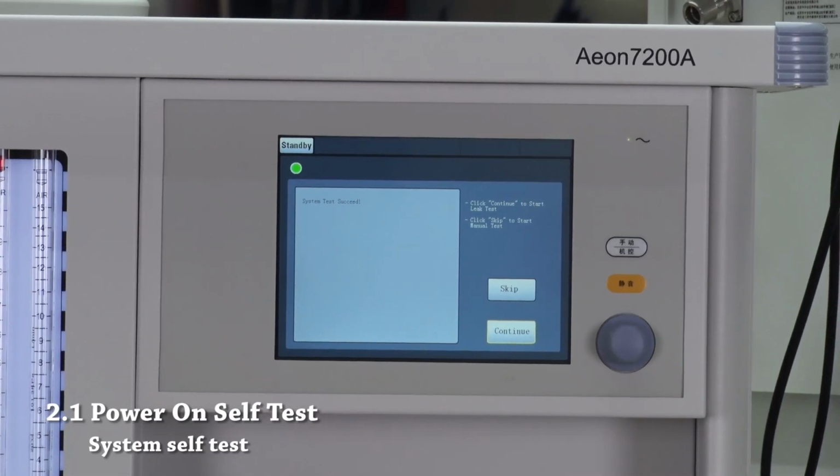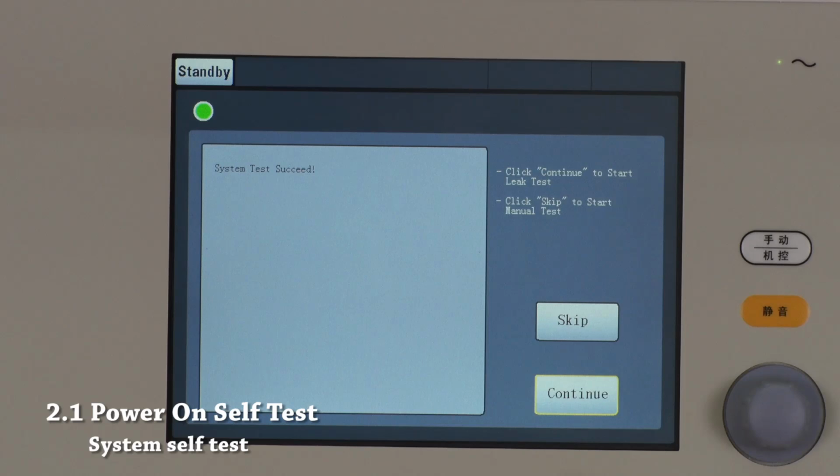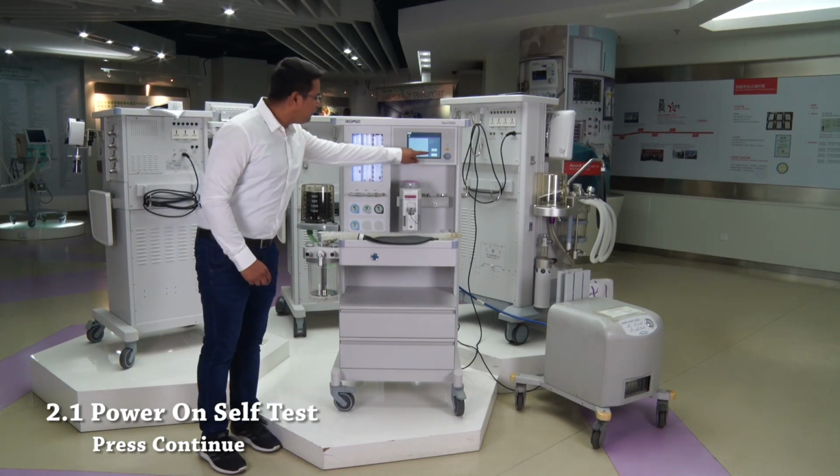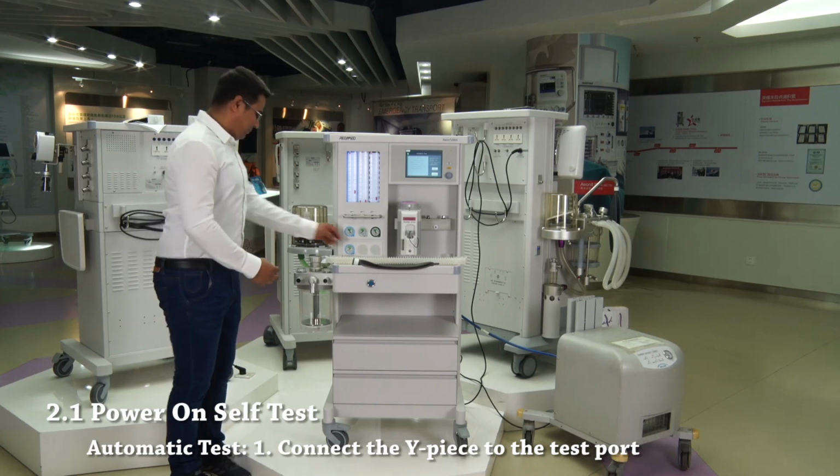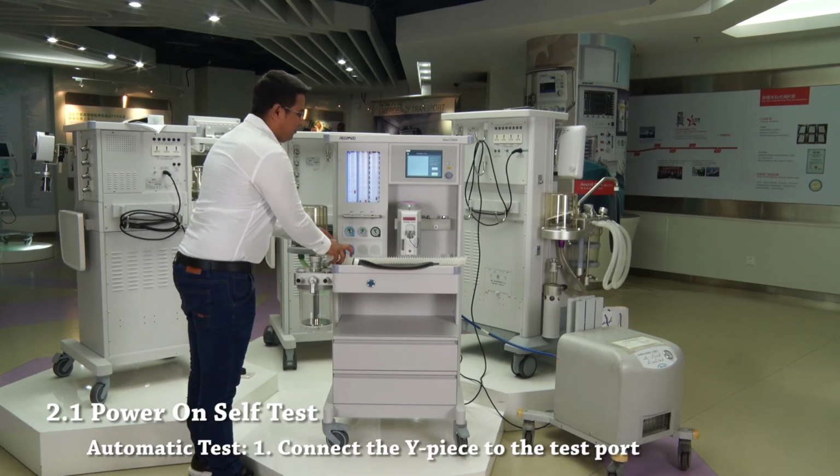After turning on the machine, we can perform system self-test. Press continue to go to automatic test page. Please follow the instructions displayed on the screen. Step 1.